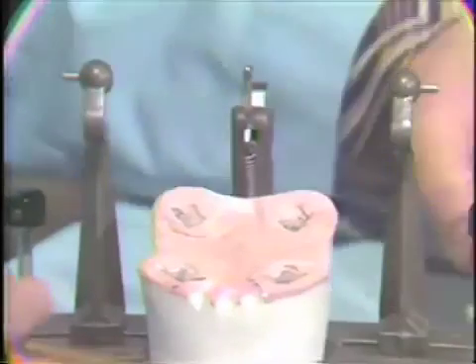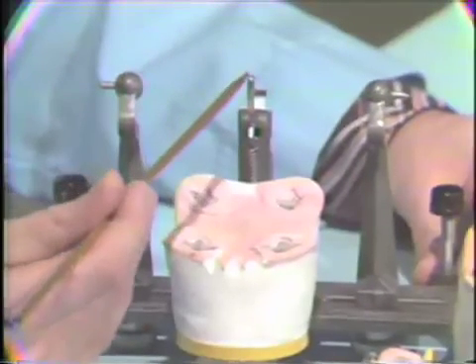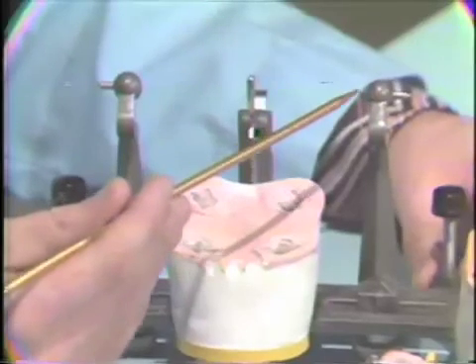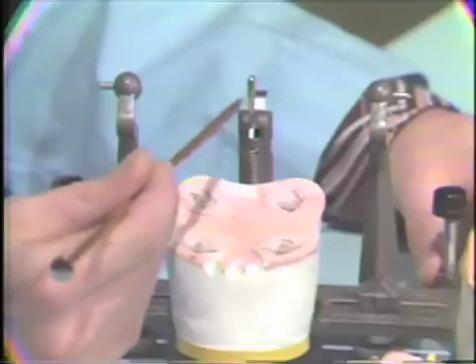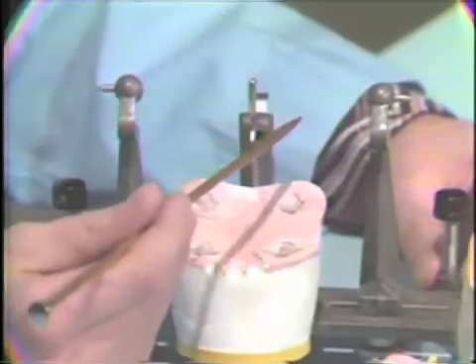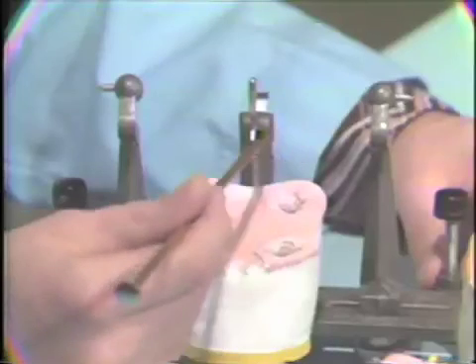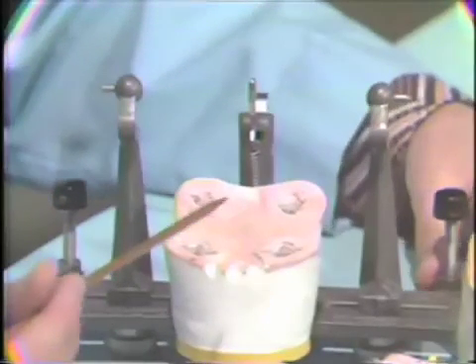Now, one final shortcoming in review is the fact that as you'll note here, the condylar distances from the midline are always symmetrical on this articulator. It has no provisions for setting asymmetries into this system. So for the patient that's very symmetrical in intercondylar distance from the midline, the accuracy is going to be quite good. With increased asymmetry of the patient on one side or the other, the potential for error is increased.